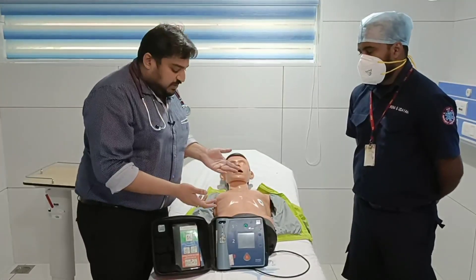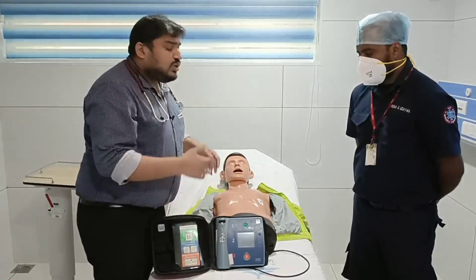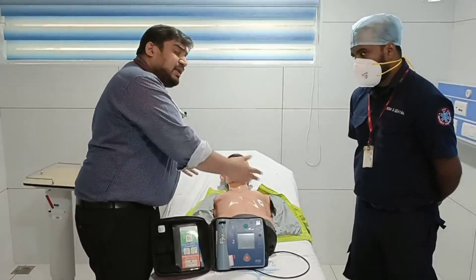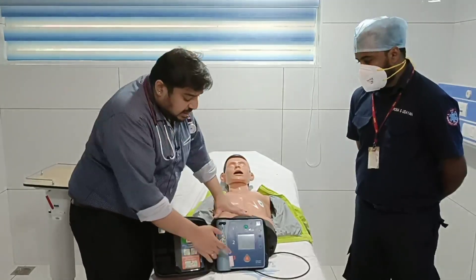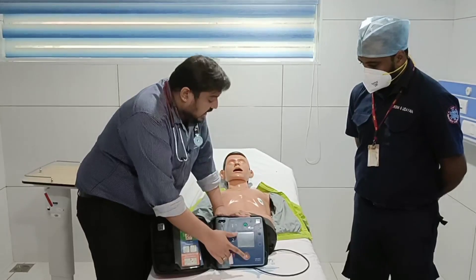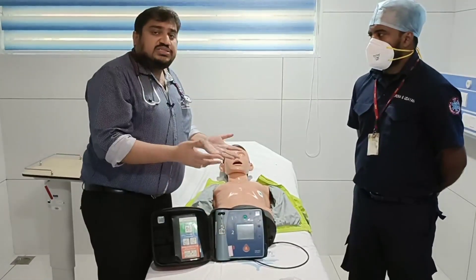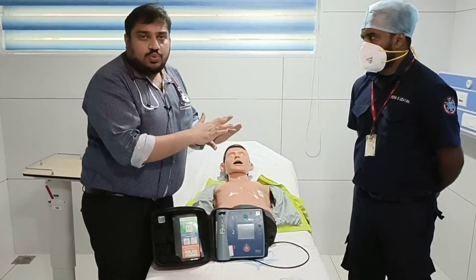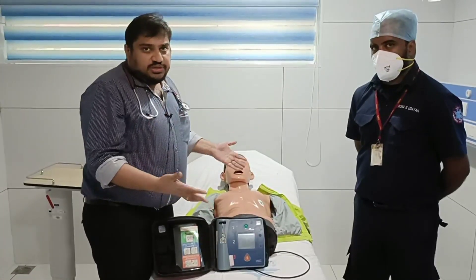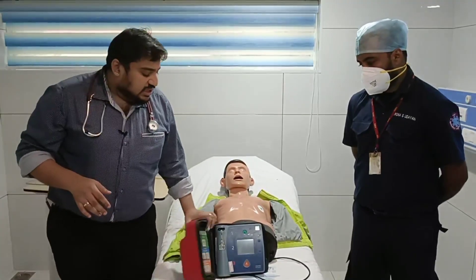Once the machine says to continue CPR, you just continue CPR. Once the machine says to deliver the shock, it will say 'Clear.' As I told you with the defibrillator, everyone should be clear — nobody should be touching the patient. You press the shock button to deliver the shock, and then continue CPR.